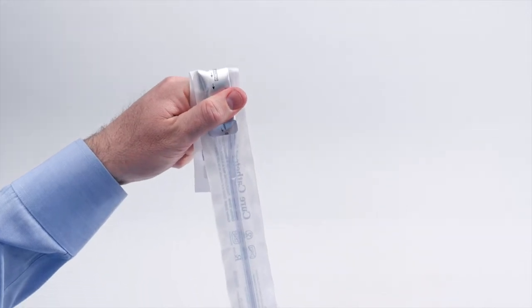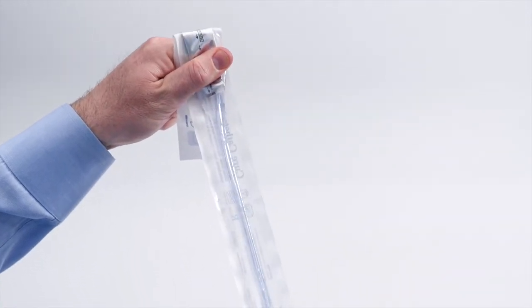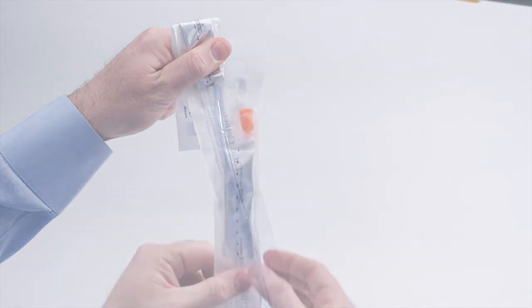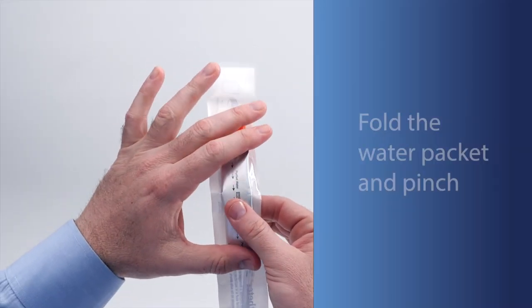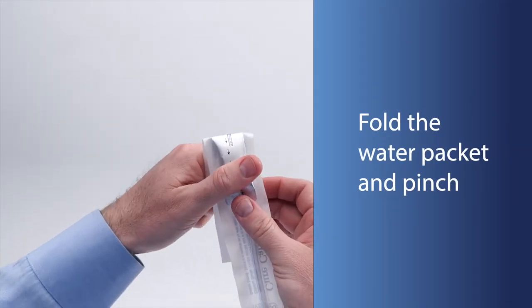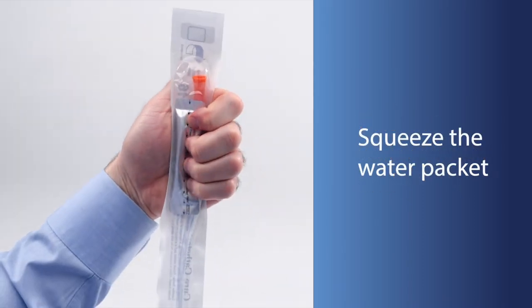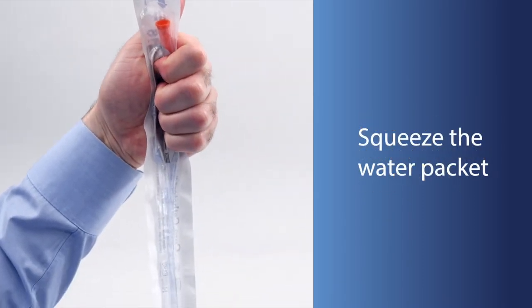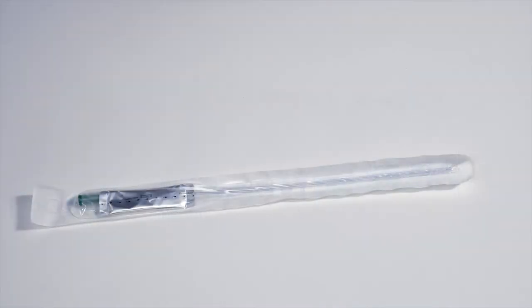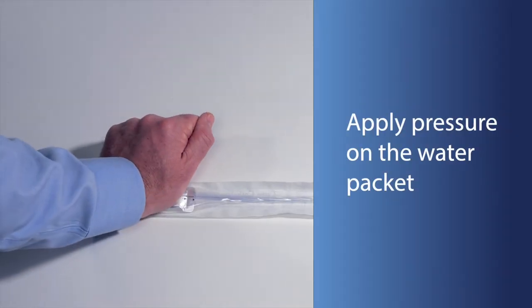Begin by releasing the purified water within the package to activate the hydrophilic coating. There are several ways to do this. One method is to fold and compress the packet. Another option is to fold the packet against a hard surface and apply pressure.